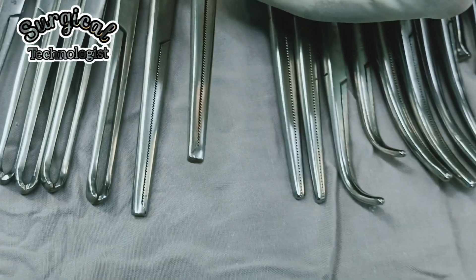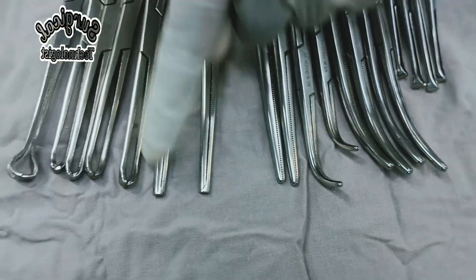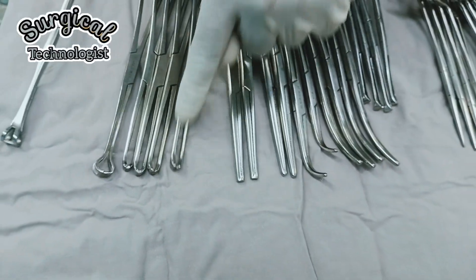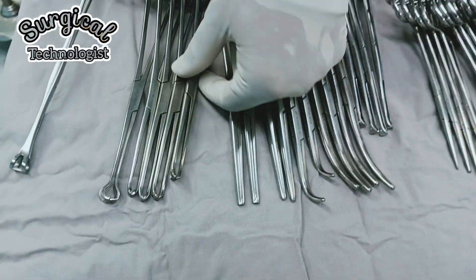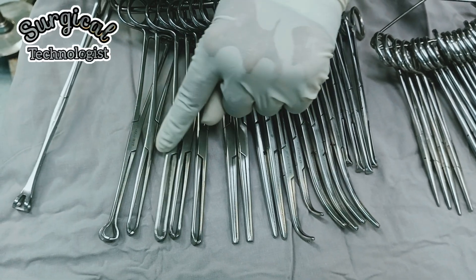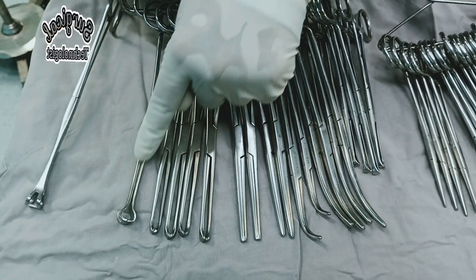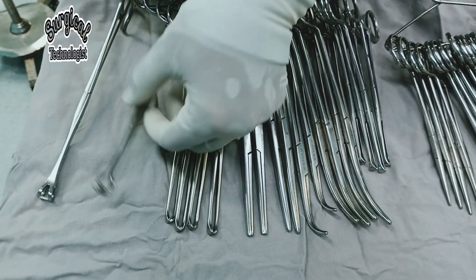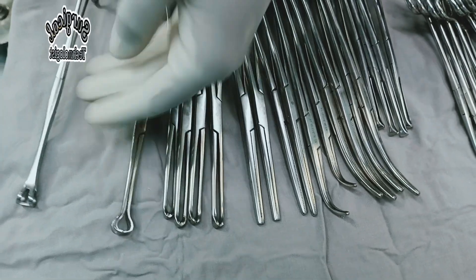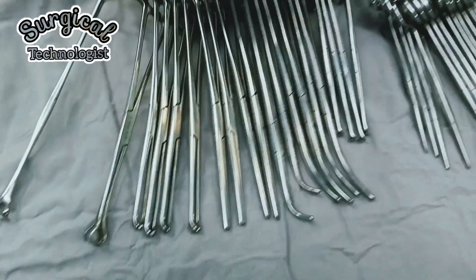This is Ochsner clamp with serrated jaws with interlocking at the tip, used for clamping or grasping vessels. This is long artery forceps, used in deep cavity to hold fascia or deep muscles.